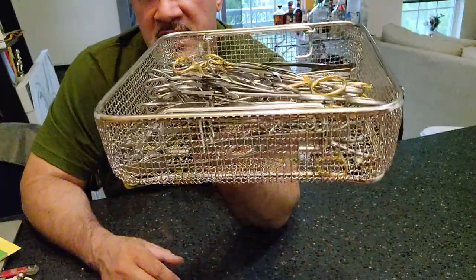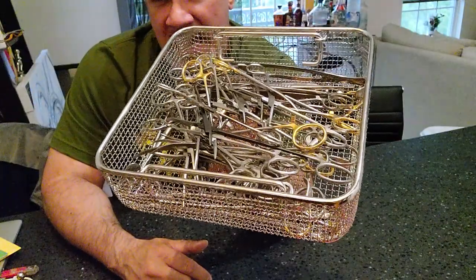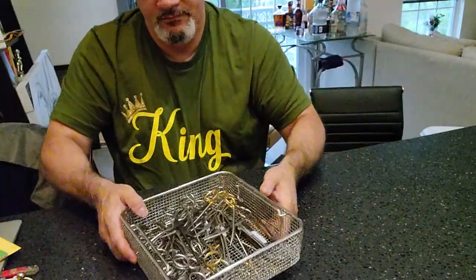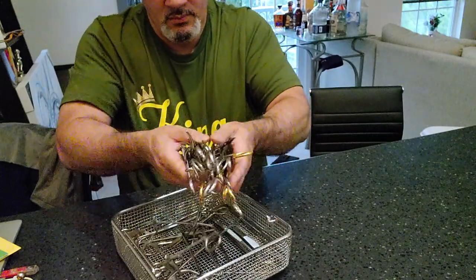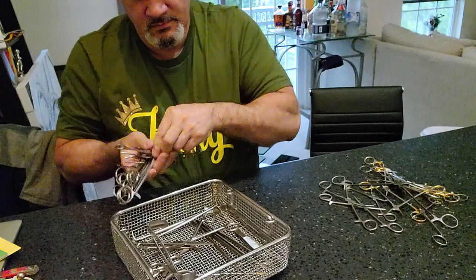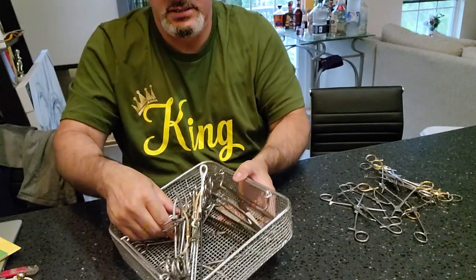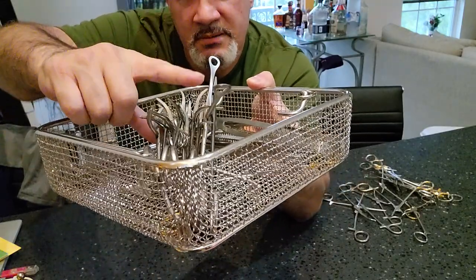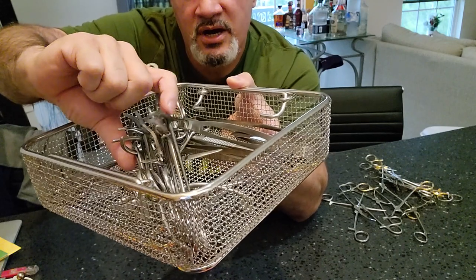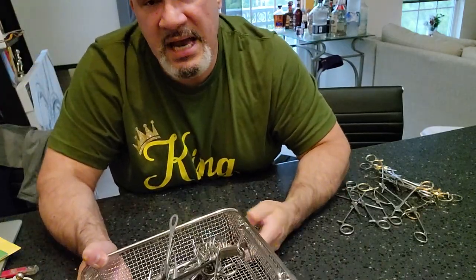They're all open, they're all exposed, they all get exposed to water. You might say that because they look like spaghetti strings they can't get exposure to the cleaning process, but if you did the manual process correctly, it doesn't matter if they're laying flat. And even standing straight up, you're going to get impingement at the top, but those box locks — because the instruments are together — you're still covering up some of the box locks. The exposure is still the same.